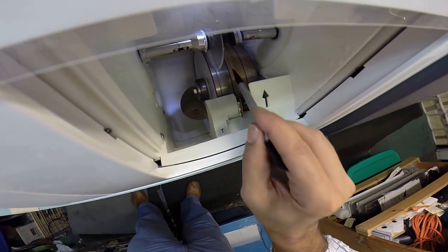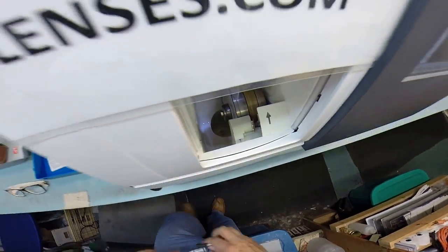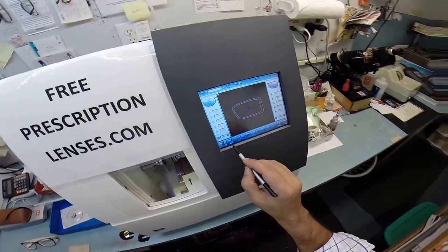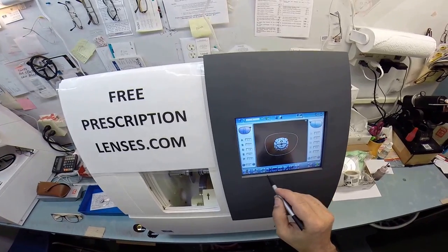And actually the cutting wheel is over here on the far right. That's what's going to grind away your lens material. That little wheel right there with that channel, that valley, that's what's going to put the bevel on to the lens. So it stays inside the bevel of the frame. I'm going to pull up the shape onto the computer. That is the shape of your right lens.